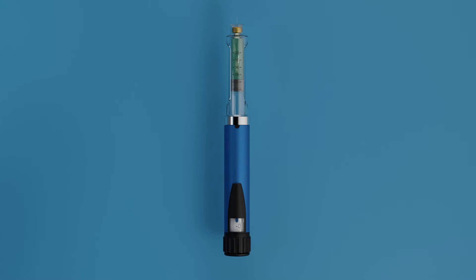In case of an air bubble, dial 2 in the dose dialer while holding the pen upwards. Push the plunger completely and the dose indicator will return to zero. A drop of the medicine should appear at the tip of the needle.